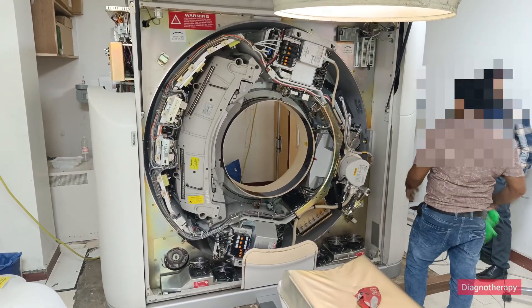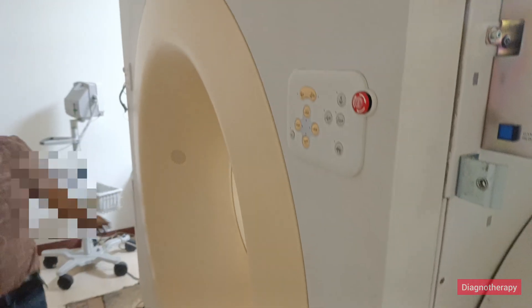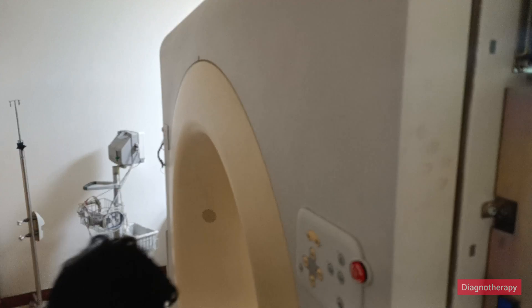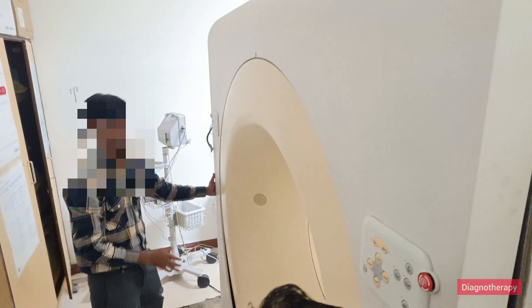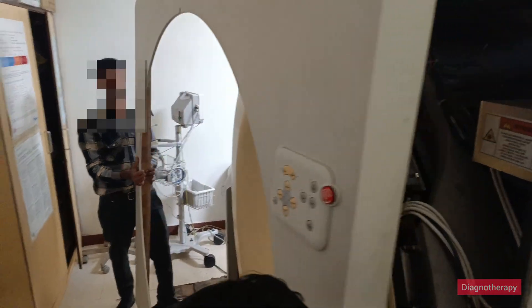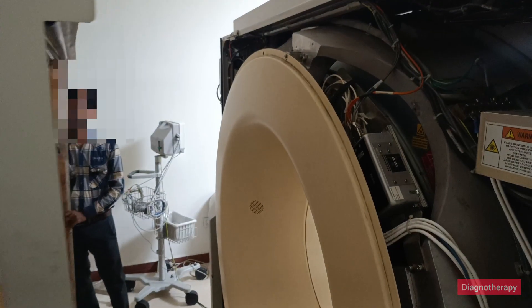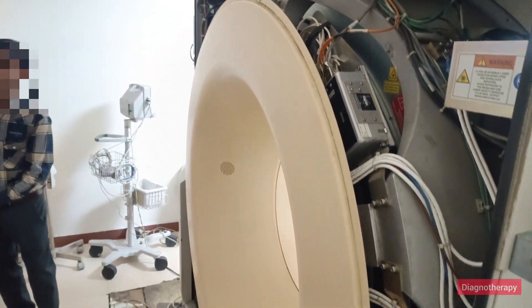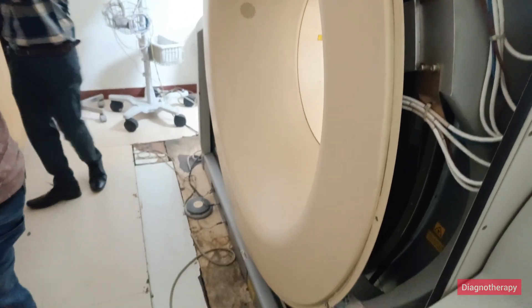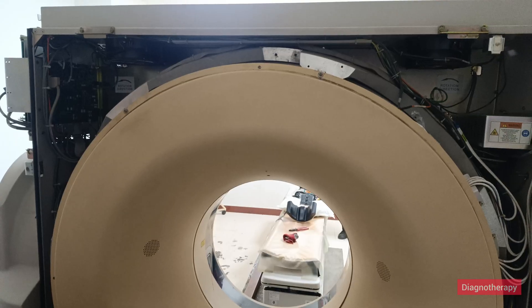This was the basic front view of the CT scan. Now we are removing the back panel. After carefully removing the locking screws, we lift it from both sides — there is a hinge upward, similar to the front — and open the panel.